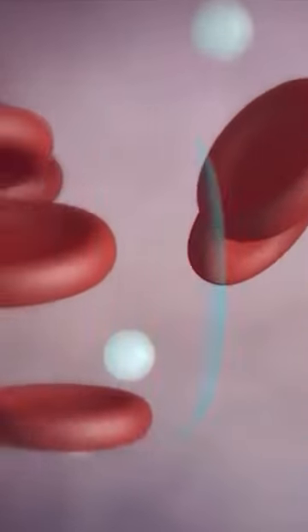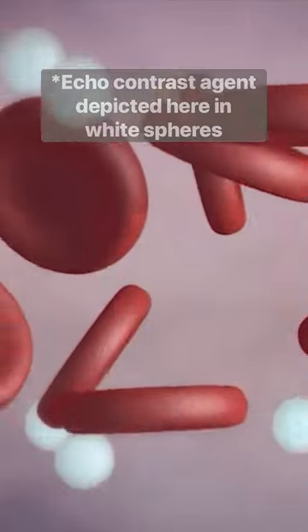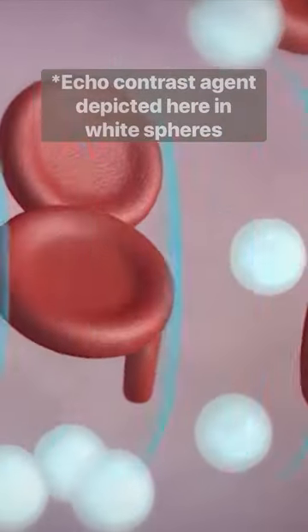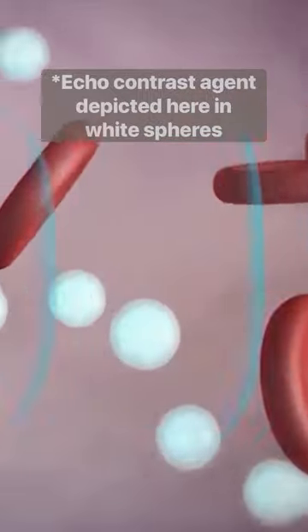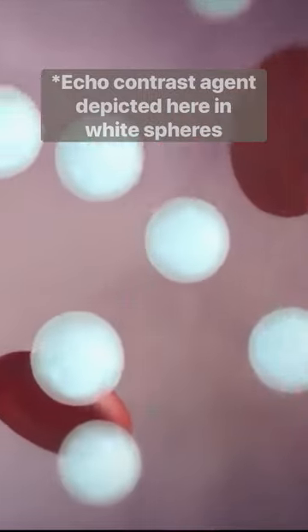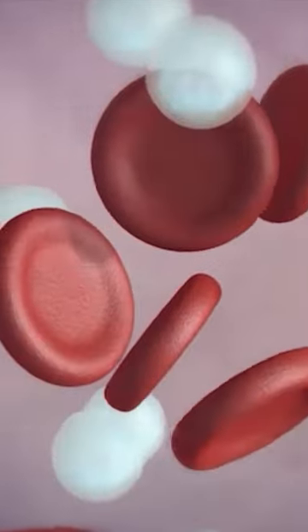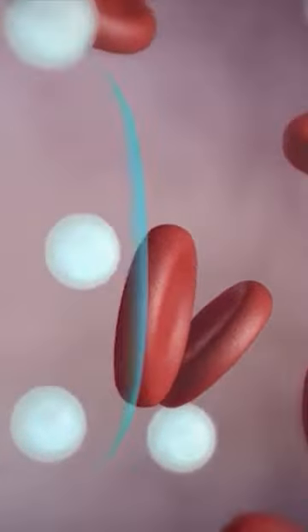The echocontrast agent is composed of tiny micro-bubbles that are small enough to cross the capillary membranes in the lungs, go to the left ventricle, and then reverberate when the ultrasound beam hits them in the left ventricle, and allow us to light up that ventricle to see a little bit better. And then you end up breathing out the gas inside of those bubbles.